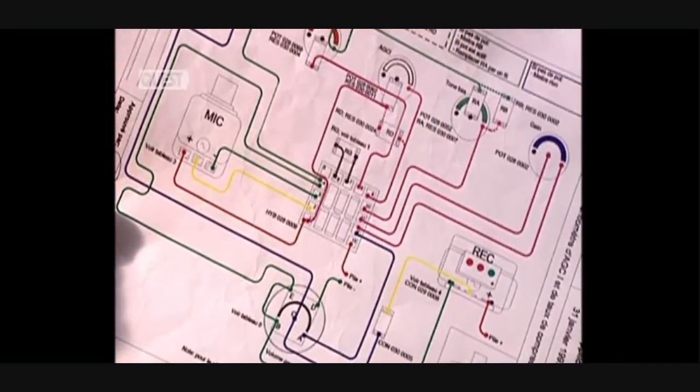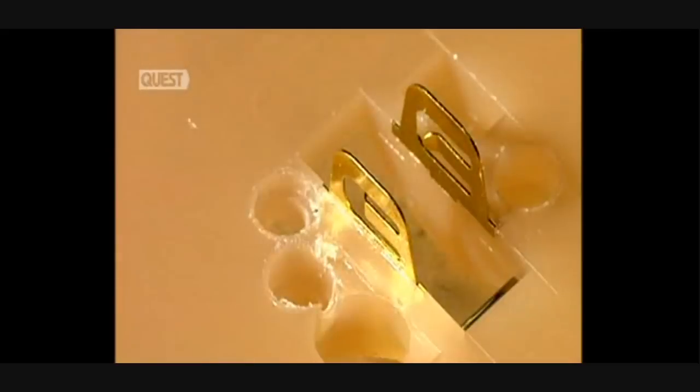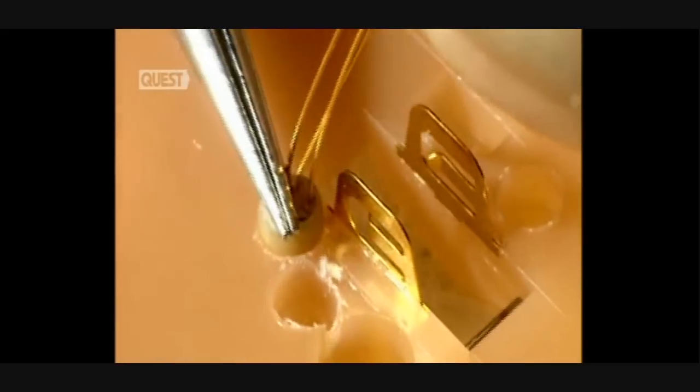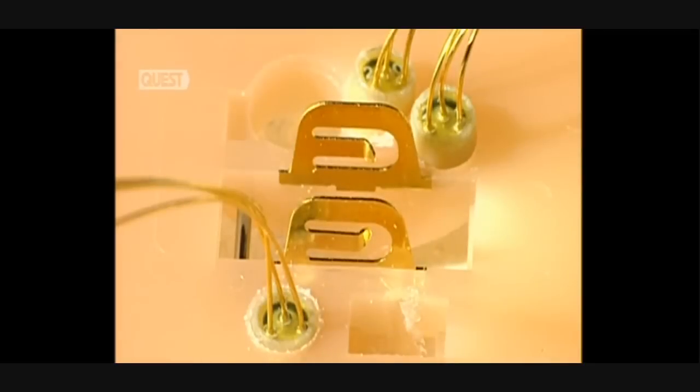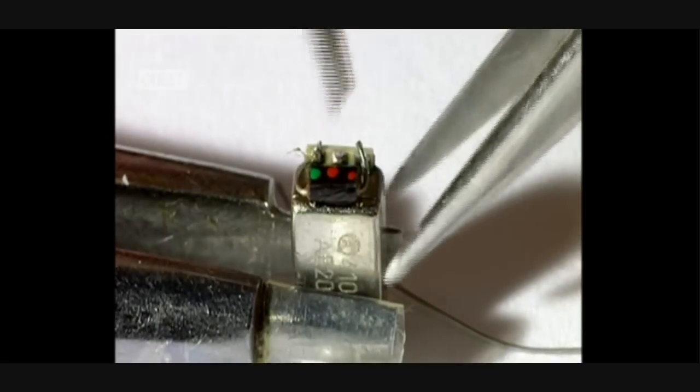This plan details the electric circuit of the amplifier. Holes are pierced for the volume control. The components are minuscule — this is the volume control, the miniature microphone that captures the sounds, and the earphone, which functions as a speaker.